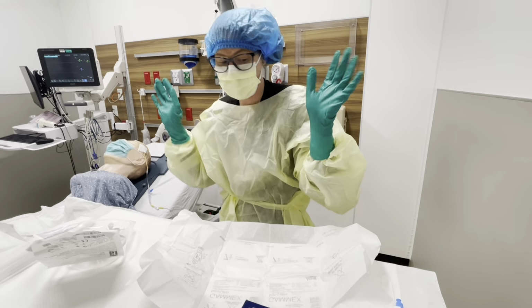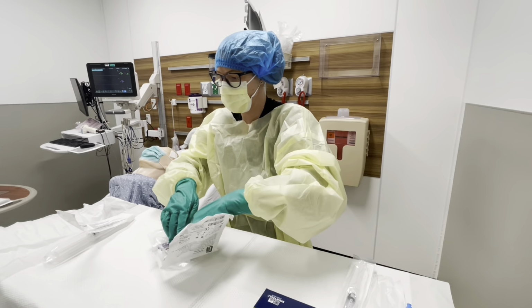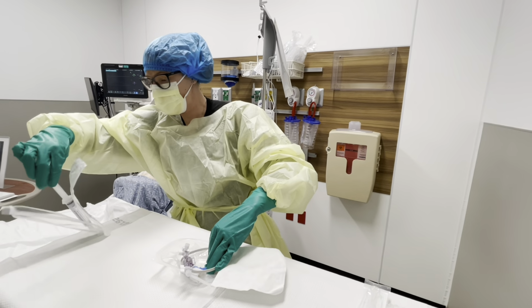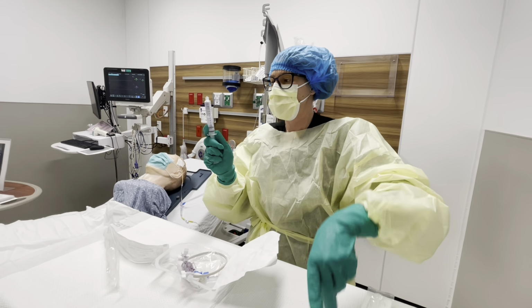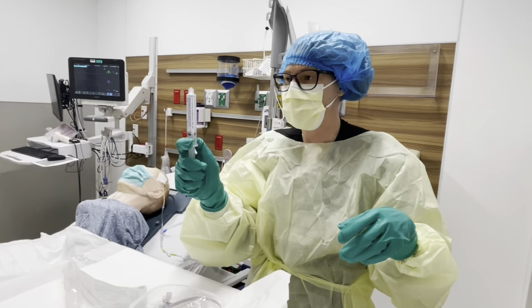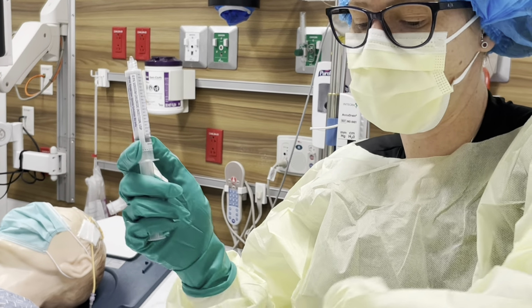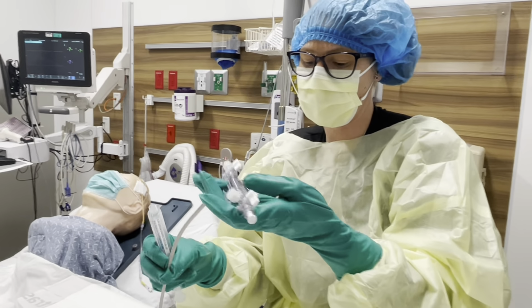All right, now we're pretty much free to touch anything we want. Sometimes it's good to grab your friend and ask them if they can help you with this. So what you're gonna end up doing is, again, this is sterile. You want to make sure that you're getting all the air out, all the little bubbles. Anytime you have air in your EVD line, it's gonna cause your ICP waveform not to be right, and then you're gonna end up having to troubleshoot it.